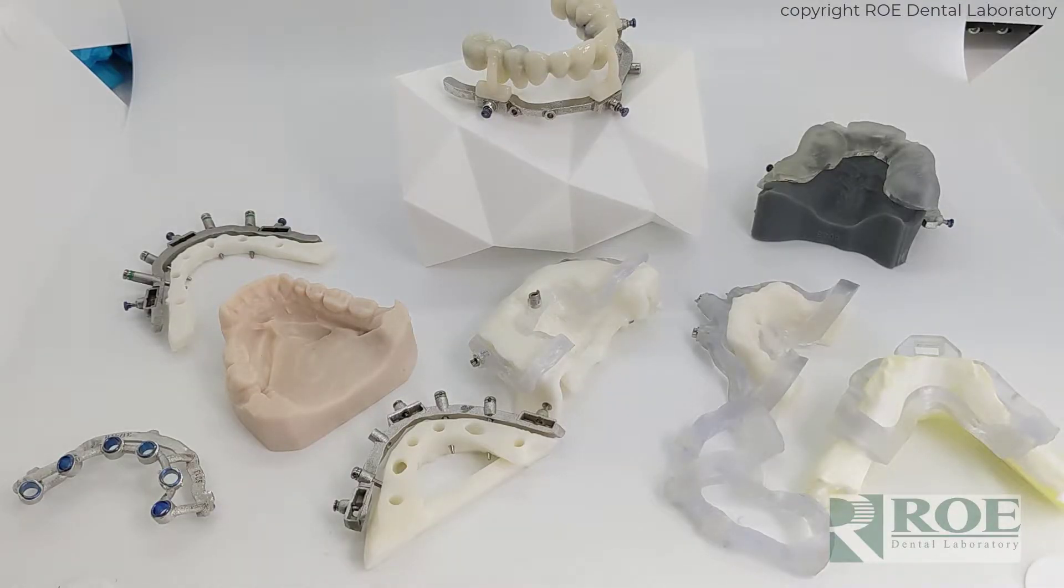Chrome Guided Smile. Metal versus plastic. This video will discuss why metal based guides are superior to plastic guides.